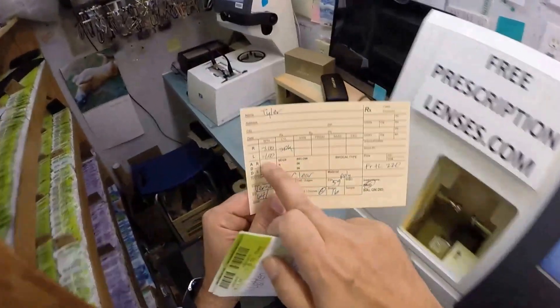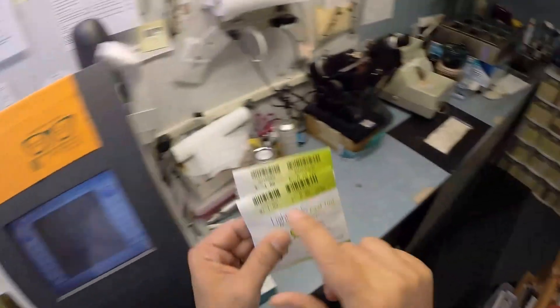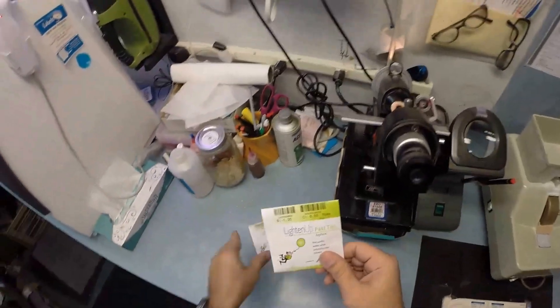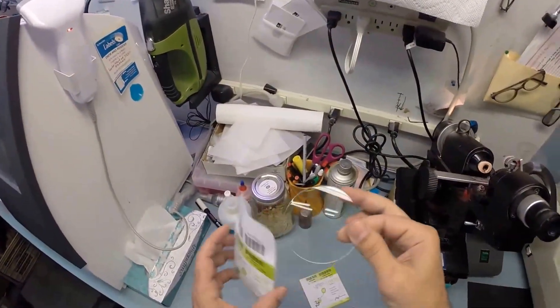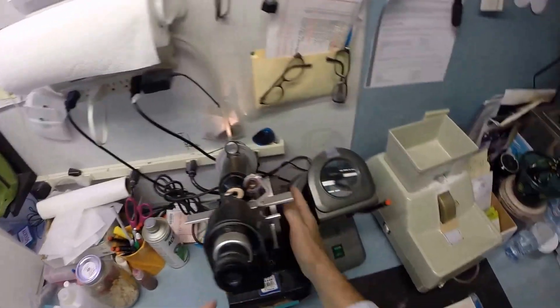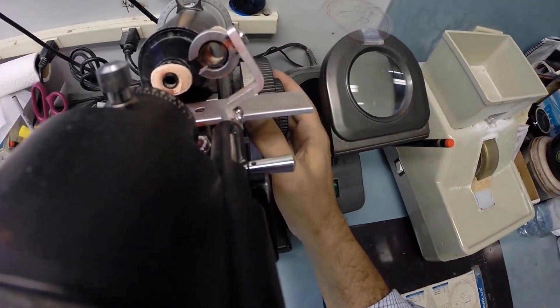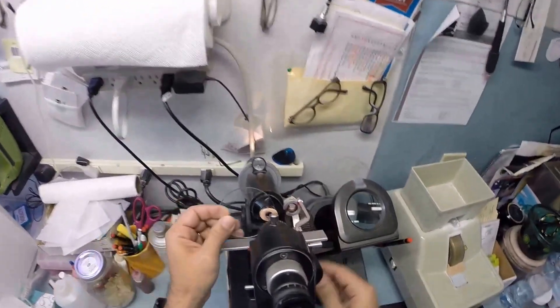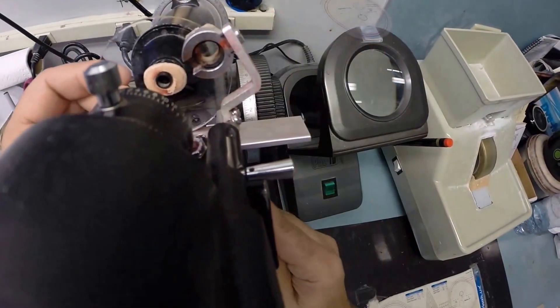Let's get your lenses prepped. You're minus one in both eyes. I'm going to take the lens out of the protective sleeve. Make sure the lensometer is turned on. I'm going to put the power drum on minus one. First, make sure everything's zeroed out. Find the optical center.